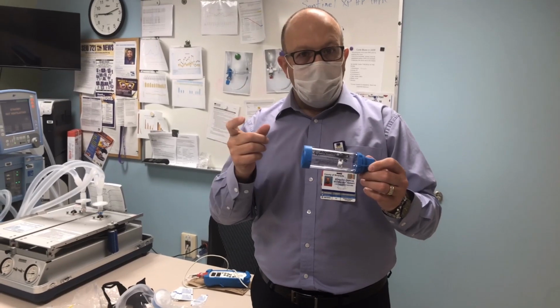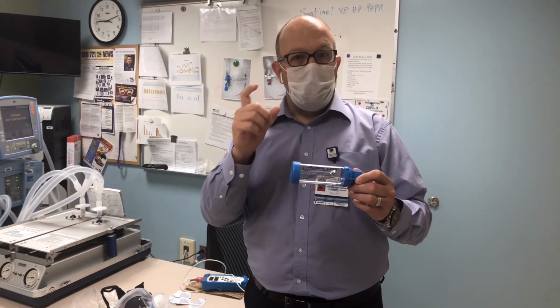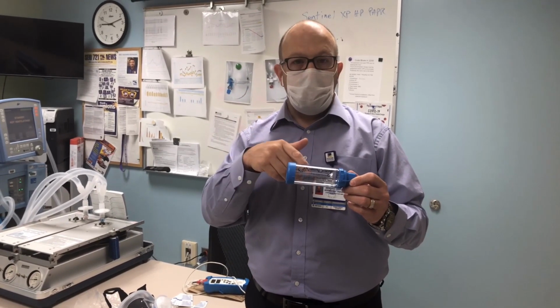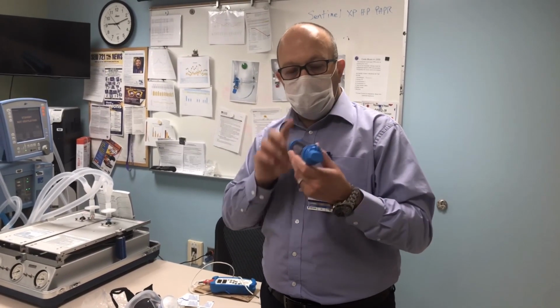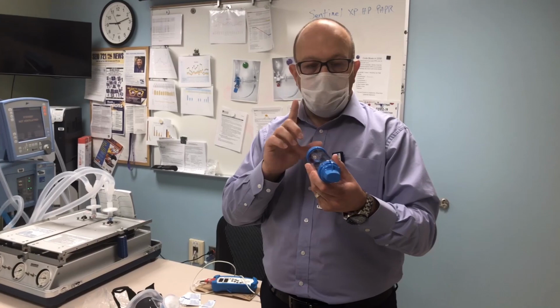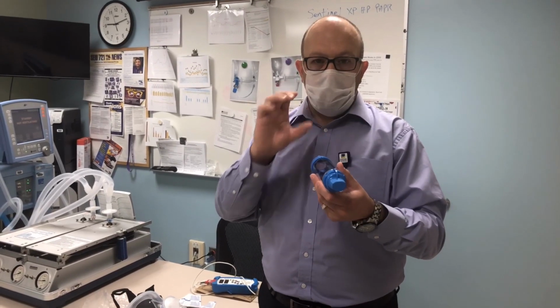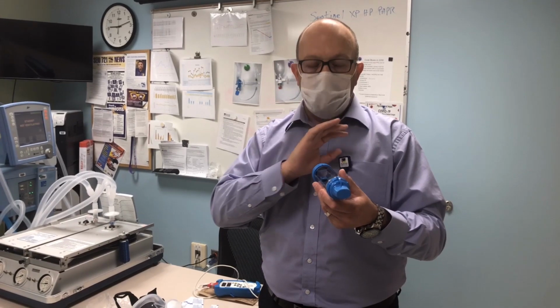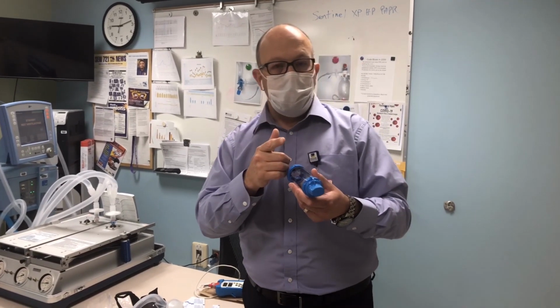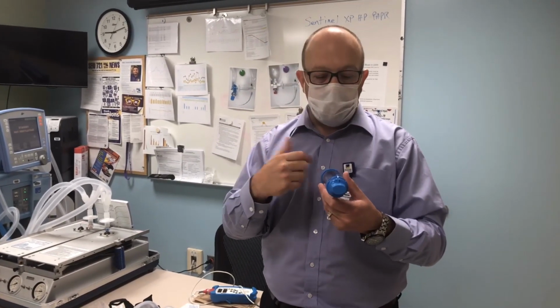The respiratory care practitioner will then have their own inhaler, and before administering the MDI to the first patient, they'll wipe it down with alcohol, then administer the inhaler to the patient. Of course, the one thing here is that the respiratory care practitioner is the only one who is going to be touching the inhaler itself. It is not going to be self-administered by the patient. It's going to be administered by the professional.